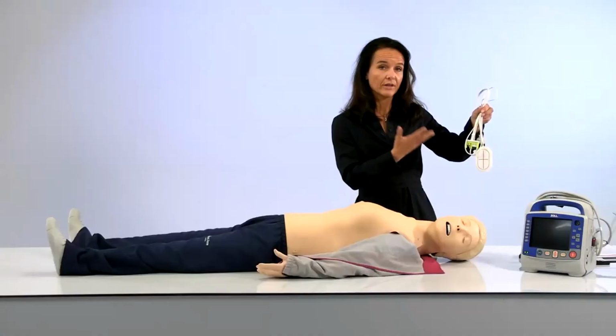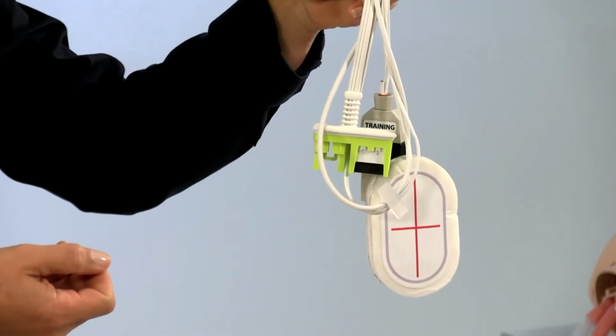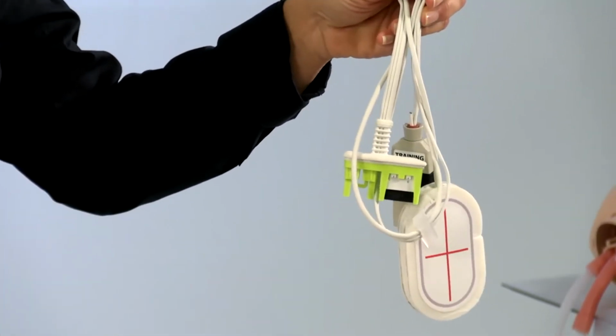So the first one here is, can you buy the new Zoll pads individually, or are they sold together with the training cable? Yeah, so this training cable is sold by Zoll and Zoll distributors. When you Google this cable, you see that it comes with the Zoll pads. They are not the pads that have the ShockLink technology. These are dummy pads in this setting.